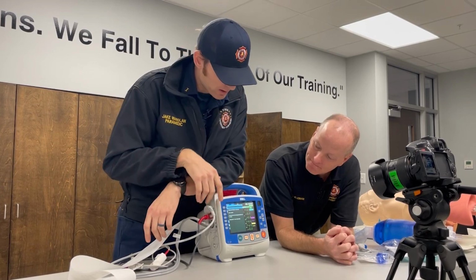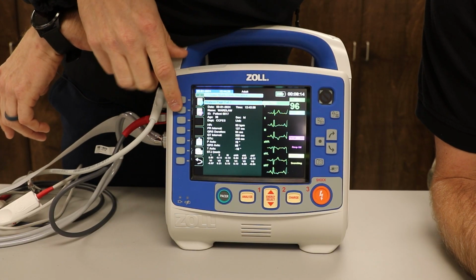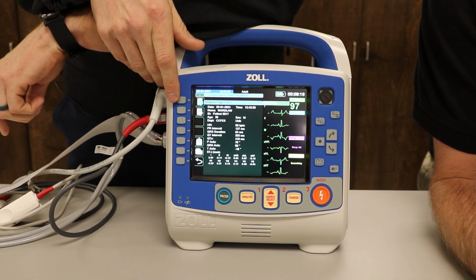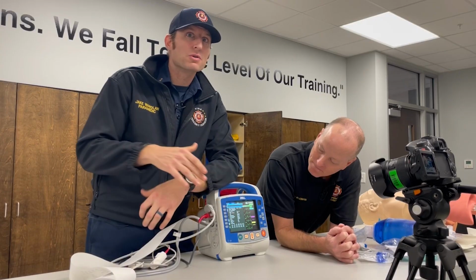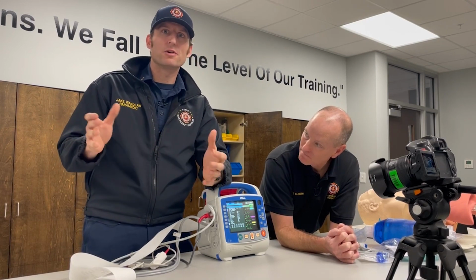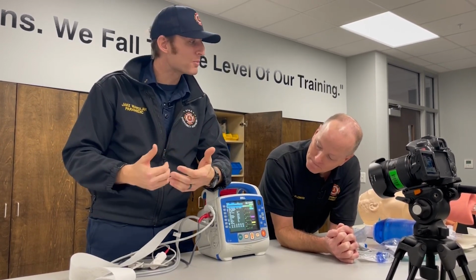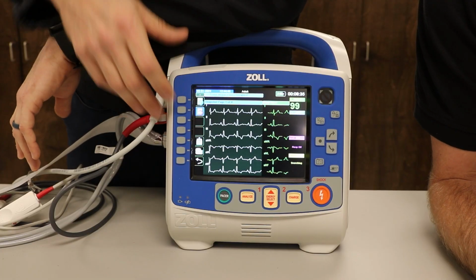I'm going to show you the additional information that's going to show up here. So see that purple arrow, second button down. That gray box is going to give you different information. All of this is numbers. It's giving you parameters as far as ST elevations. It's giving you QRS durations. We're starting to get into the ALS side of what this 12 lead means. I just want you to understand you're getting more information. A lot of quality information. Very good information. Hit the purple again.